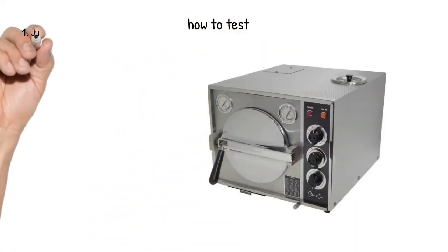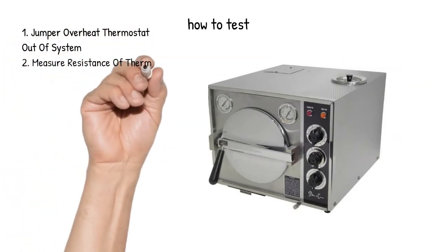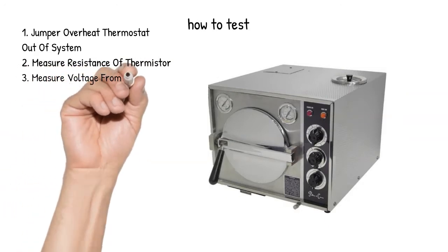How to Test: 1. Jumper Overheat Thermostat Out of System. 2. Measure Resistance of Thermistor.